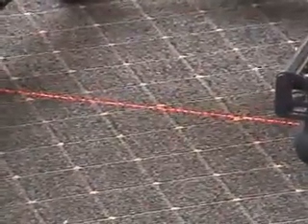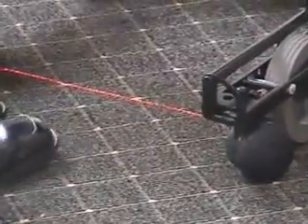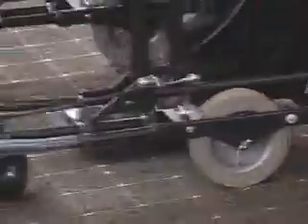This walker is used a lot with Parkinson's disease, which is why we added this feature — it's called the laser module. The laser module projects a red line on the floor. The advantage of this red line is it helps people who freeze with their Parkinson's to initiate movement as well as take longer steps to improve their gait. Basically, when a person has something to focus on in front of them during freezing, it helps them fix that. And when they are not freezing, they can of course turn it off and just use it like a regular walker.